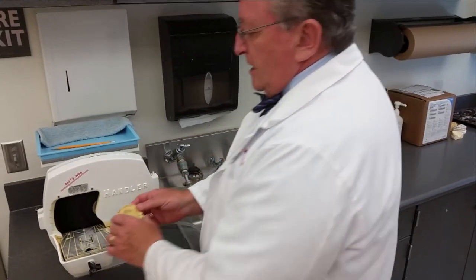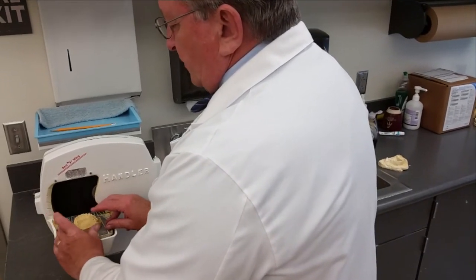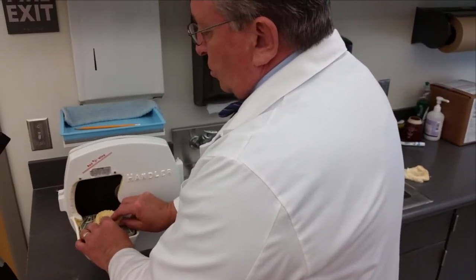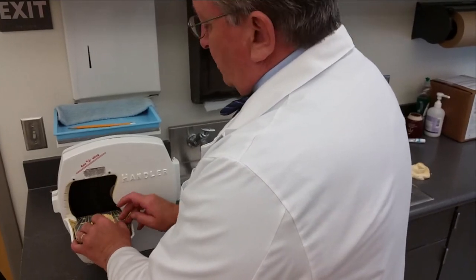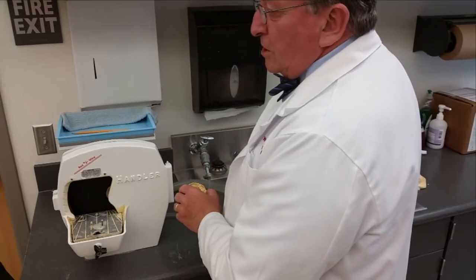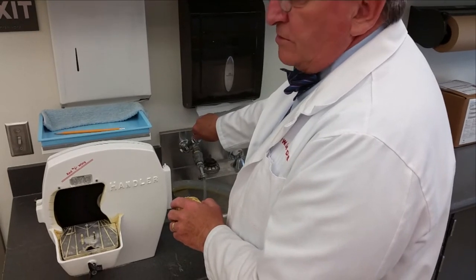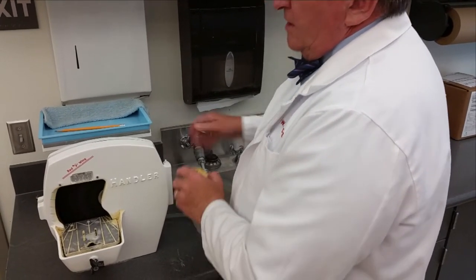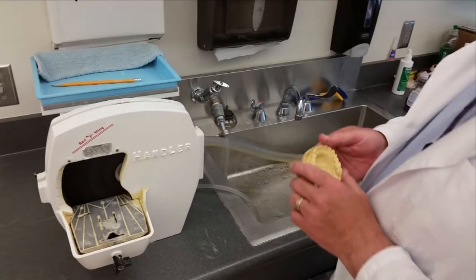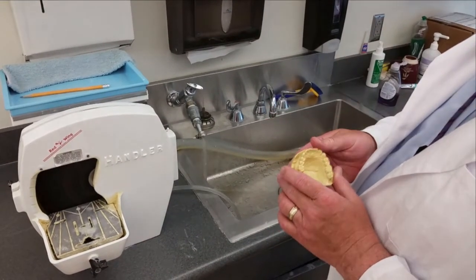Always use a two-hand technique when grinding and working. Try to rest your fingers on the base of the trimmer so that you have good control of the positioning of the model. Also, when you're done, make sure that sufficient water runs through the trimmer so that it doesn't clog with debris. Now turn the water off, and then be sure to turn off the trimmer. Remember, it's important for you to protect yourself with all of our dental instrumentation.